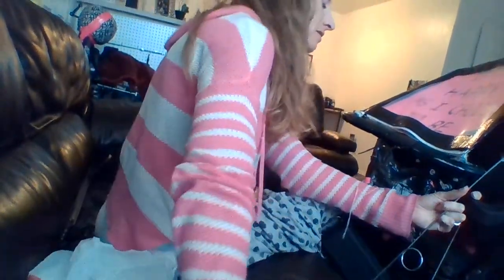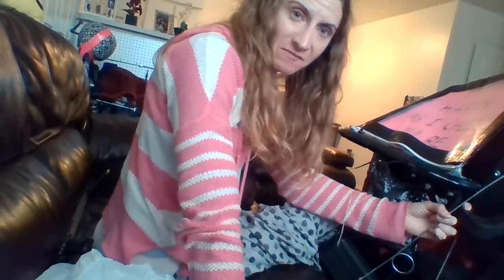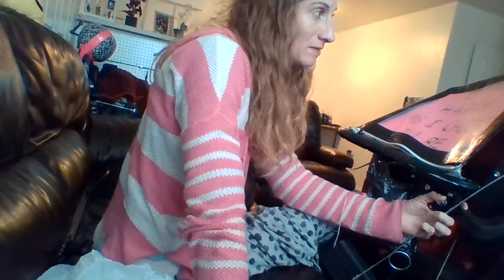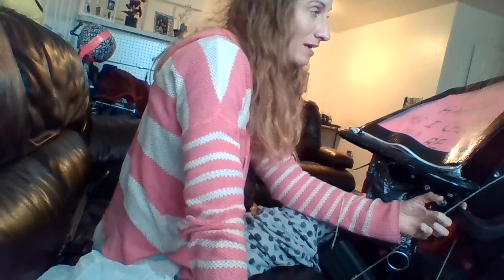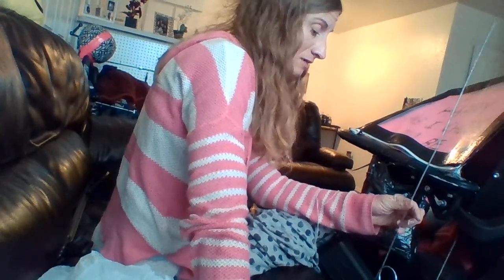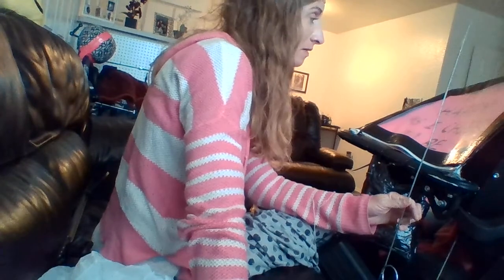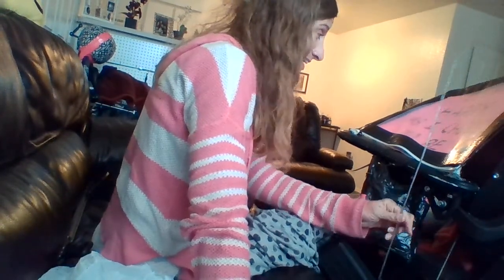Hey YouTube, I just wanted to tell you guys, after a period of a couple weeks of recording process with my new wheelchair, I think I am starting to love it. I've got the hang of it — I don't have to adjust the speed every time I go out or come in or whatever. I think it's going to work. It's good. I'm happy with it.